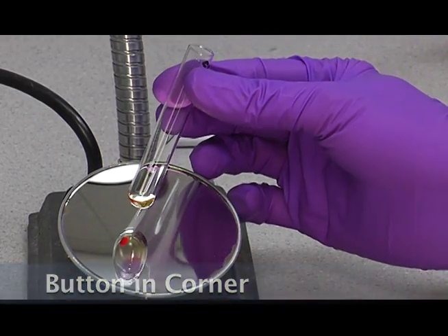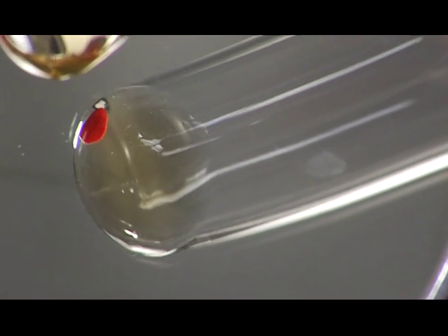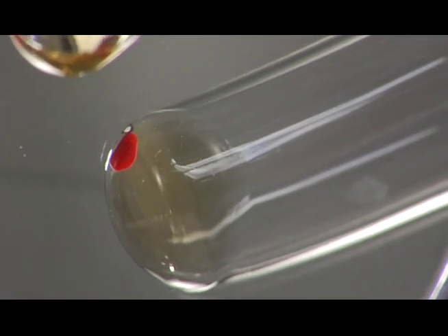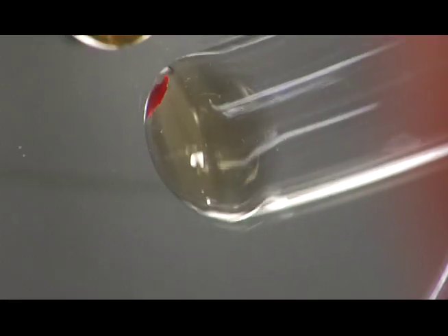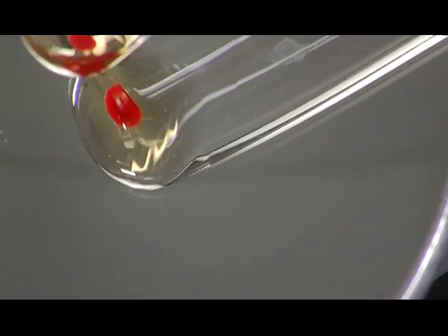Again, I'm going to roll the button just up into the corner a little bit. Some people have trouble seeing the button in this position. In that case, then you can use one of the other alternatives that I showed you, where the button is a little more visible to you. So we're just going to tap it a few times here. And there it came off. We're all in one piece. That's a 4+.